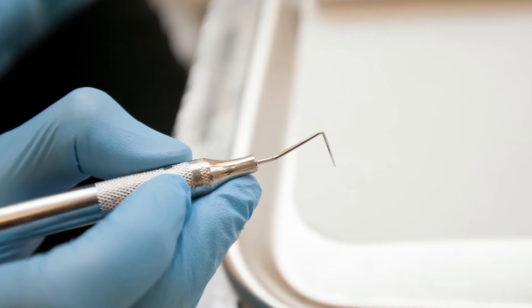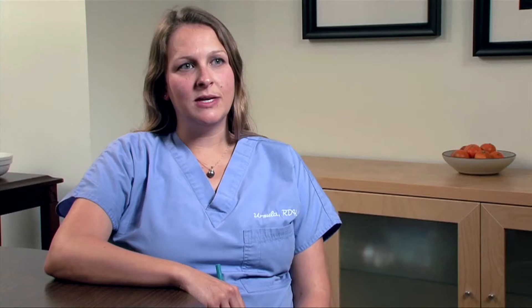In this video we will focus on hand instruments. One day I decided to really pay attention to my ergonomics and watch while I was scaling a patient how I was actually holding my instruments. To my surprise, I was not holding the instruments the way I was supposed to, or the way we're taught in school — the ergonomically correct way.